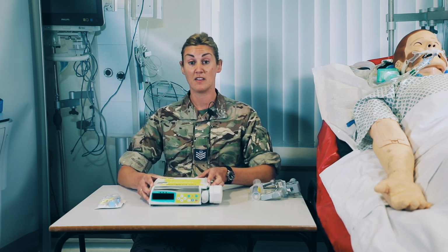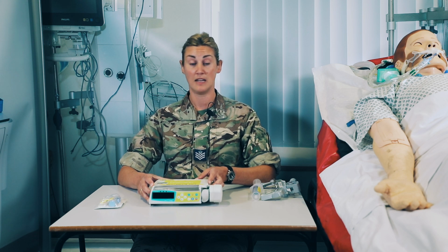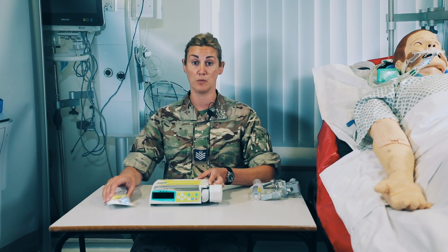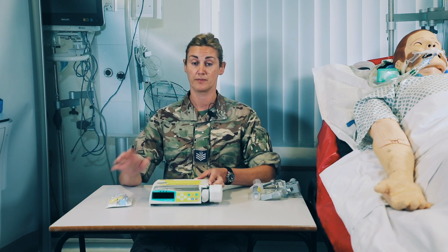You'll also remember that this is not part of the CCAST module. This isn't in the 575. It's part of the PASA module. So if you're picking up a patient that you're expecting to put an epidural on, then you'll need to lift this with the consumables from the PASA module.